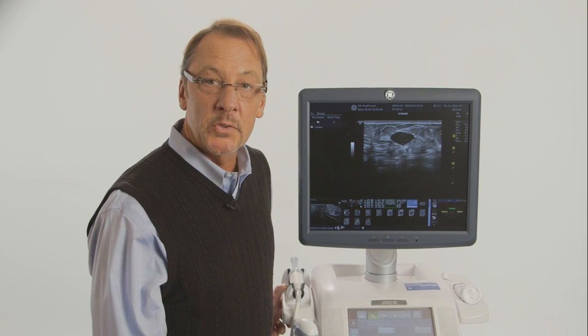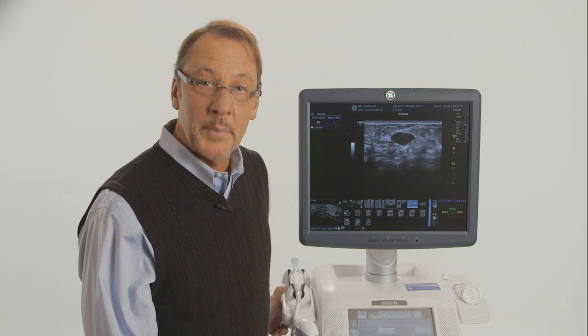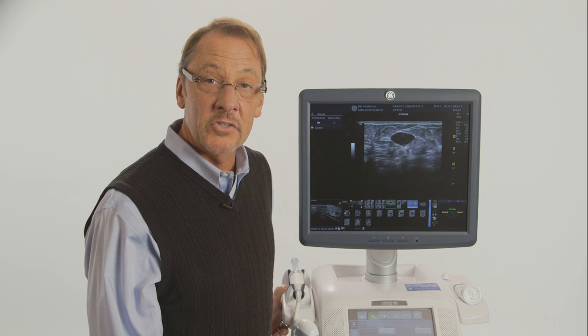Welcome to the Logic Series Video Tutorial Needle Visualization Guide. This video will help provide you with a better understanding on how to improve needle visualization during an interventional procedure.